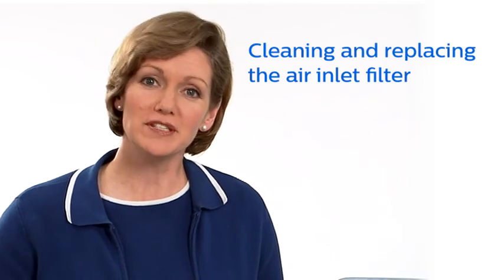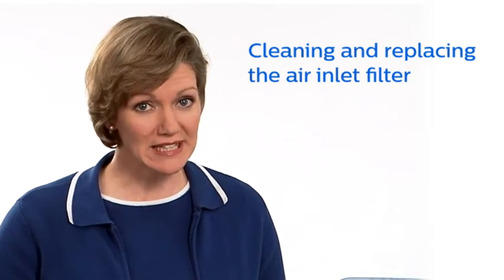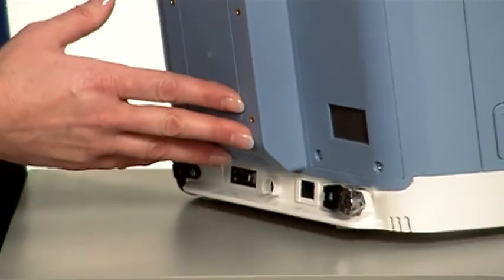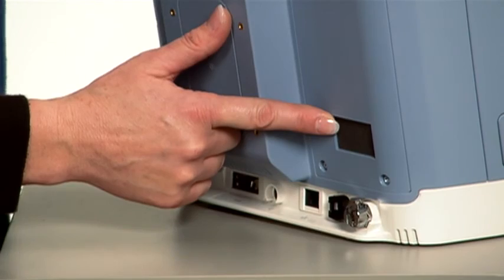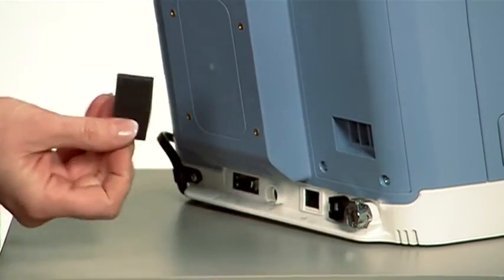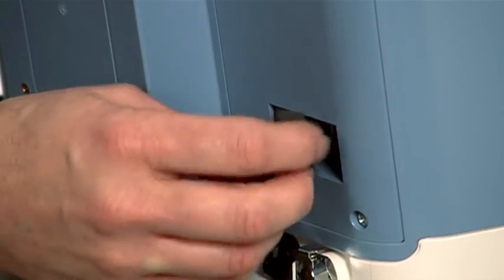With normal use, the gray foam filter should be cleaned at least once every 2 weeks. The filter is in a recessed area on the back. Remove it by gently squeezing the filter in the center and pulling it toward you. Insert a clean filter to take its place.